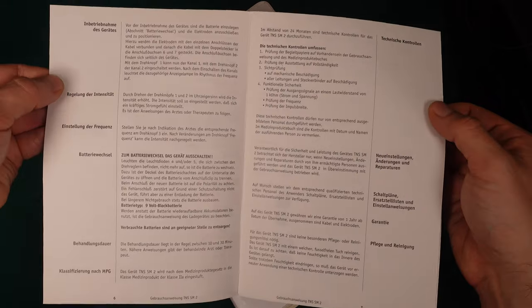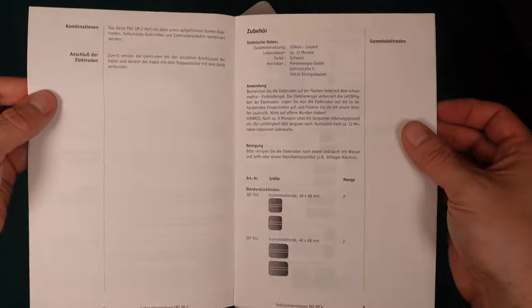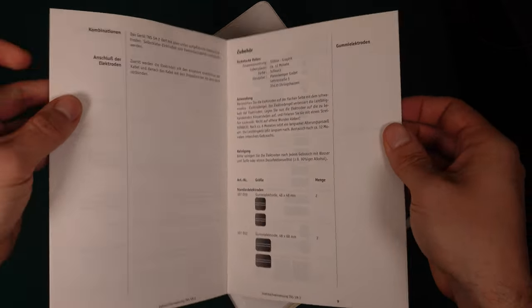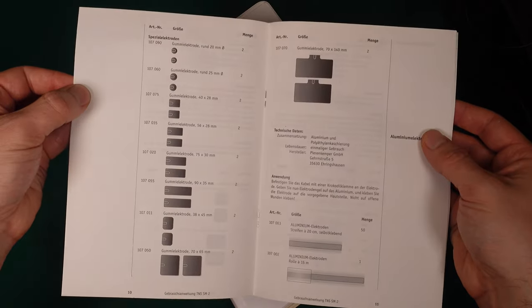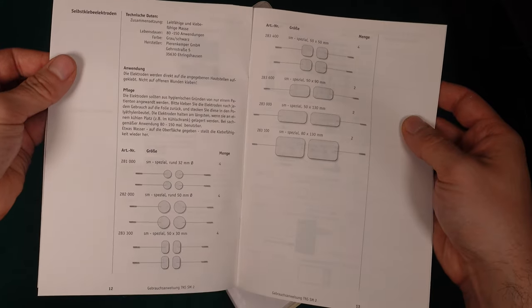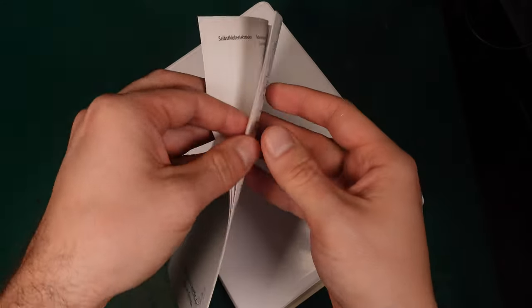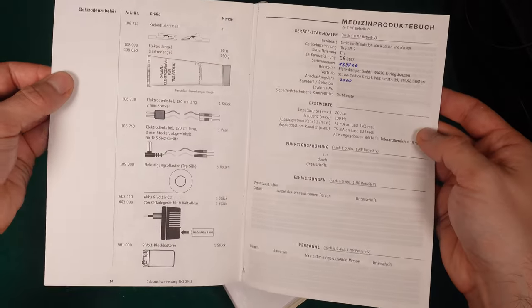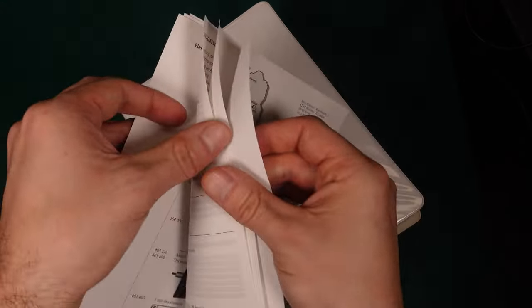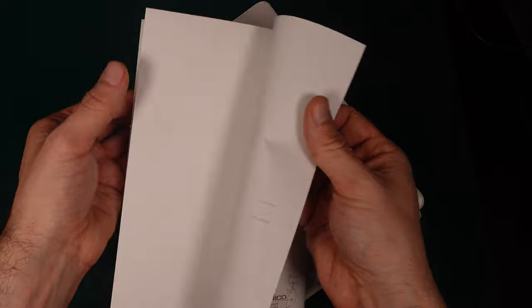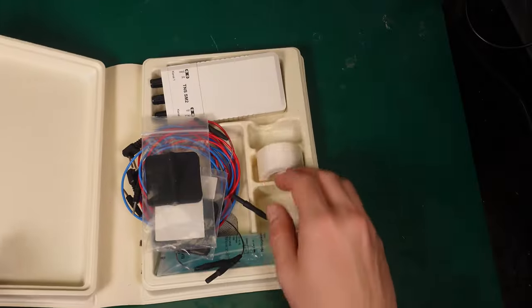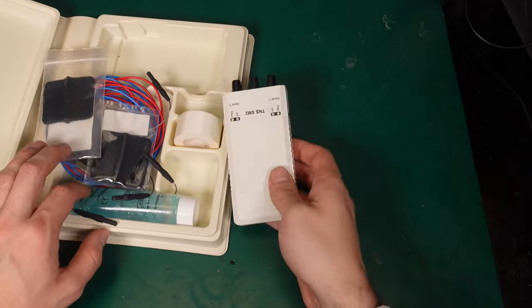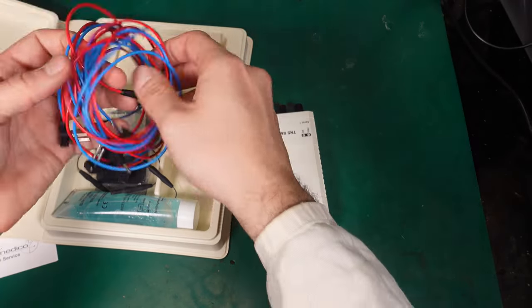And the idea for today is that I'm planning to hook up, and I'm going to put an oscilloscope in parallel and we are going to see what's going to happen. So here is the user manual, and let's try to hook up the oscilloscope.